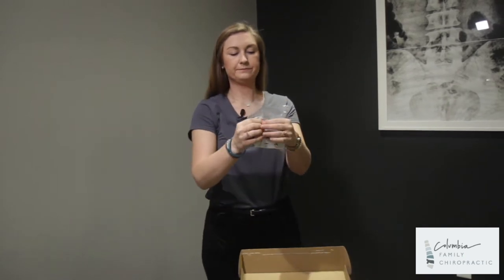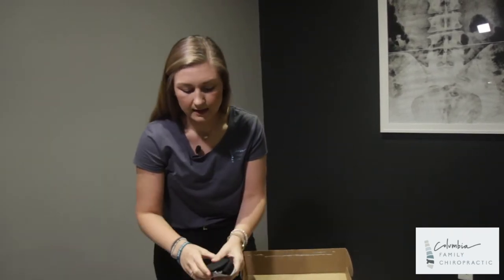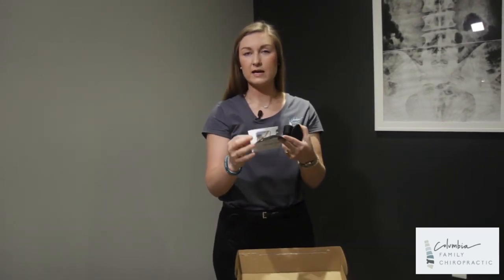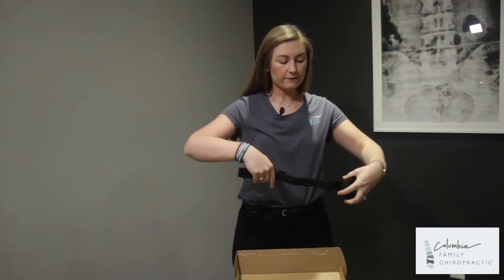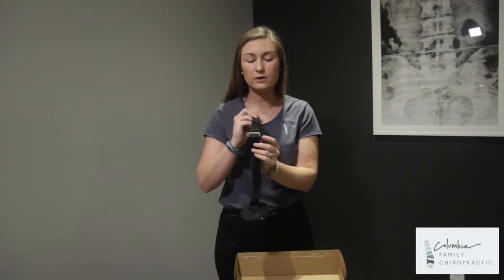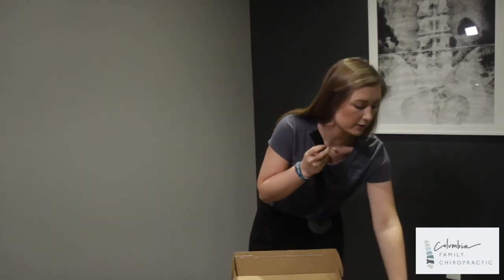This is going to be our door stopper unit and the adjustment tool. This is going to be just a sheet of paper that shows you how to set everything up, which is what I'm going to do right now. In the office, this is the exercise you do when you first come in after you sign in — it's what's on the wall and you can adjust through the clips. At home you will be adjusting through this.